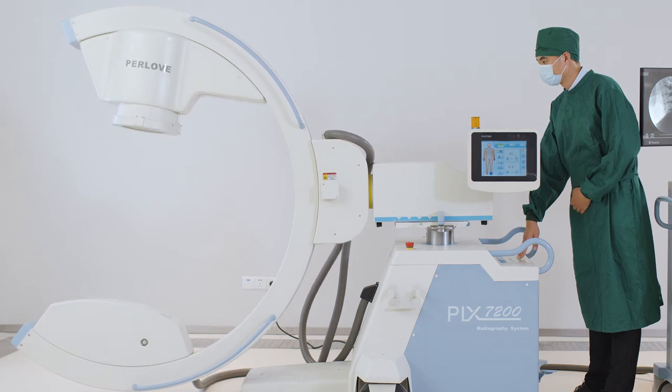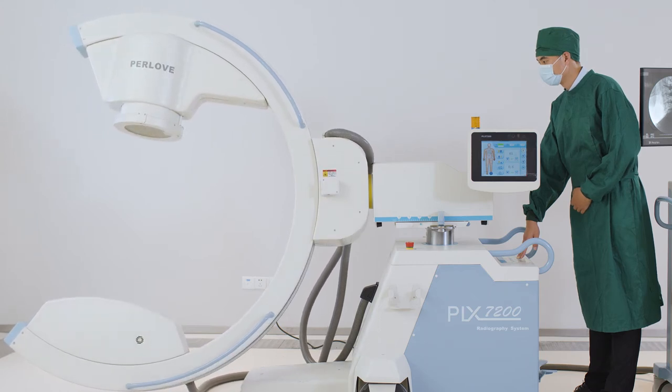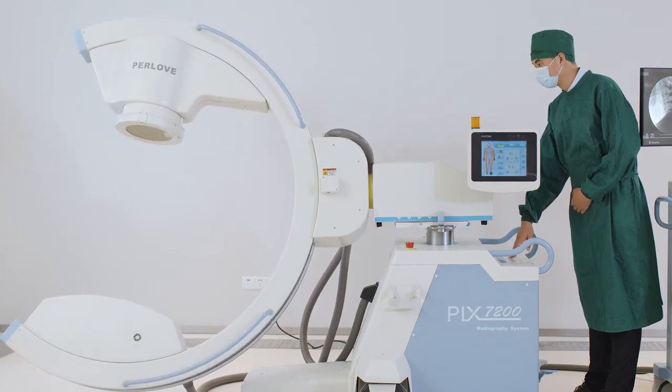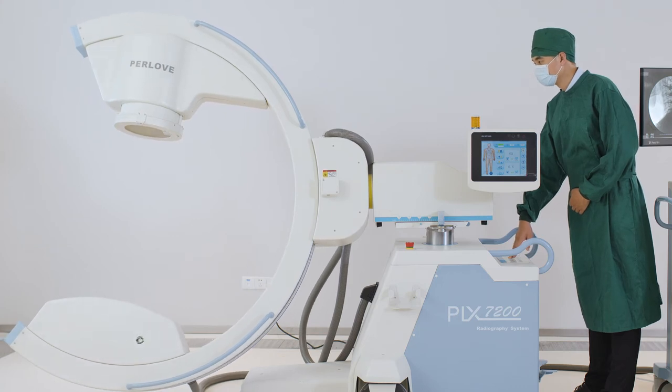With all-electric motor driving control, and provide a comfortable surgical environment to the greatest extent.